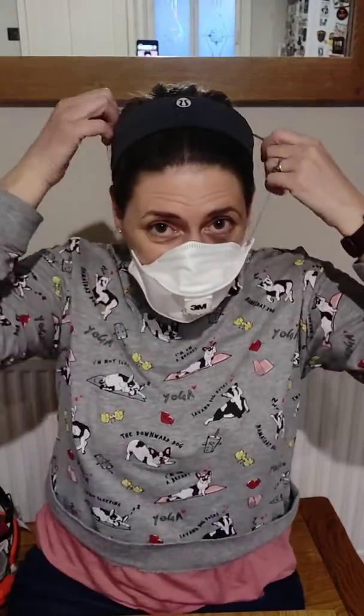You also need to wear the mask the same way each time, so wherever your rubber band sits, that's where you need to attach it. Open the mask a little bit — we recommend putting one band on the top of your head across the crown, and then the other one along the back. Then make sure it tucks underneath your chin, and use two hands to fold it around your nose.